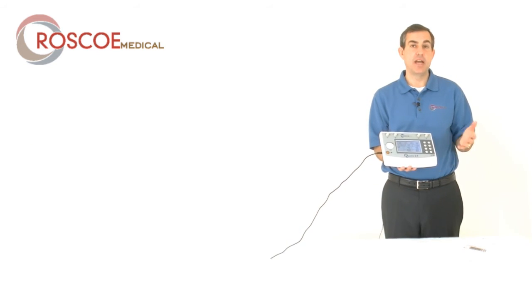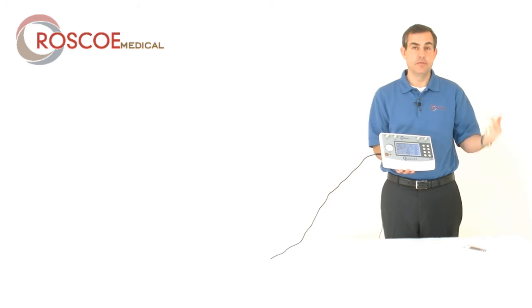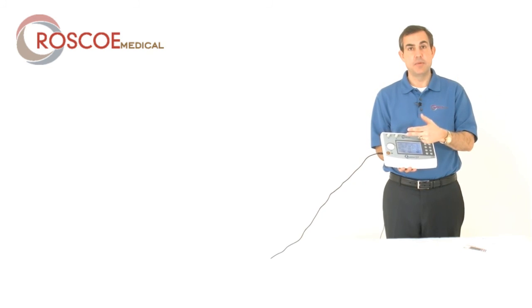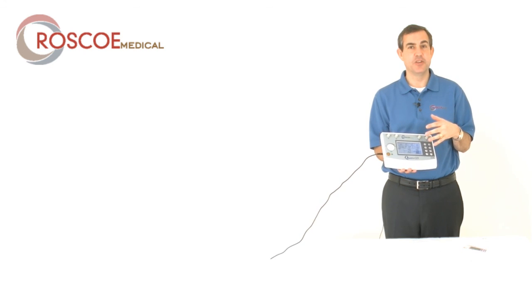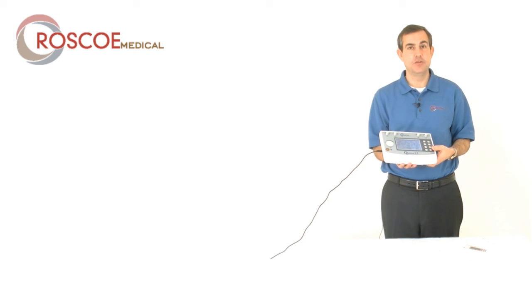Quattro 2.5. It's available now with these great updates of protocols, the stim on-off feature, and the two timers. There's other stuff baked in here too, which you guys are really gonna enjoy. Those are the main features. Thanks so much for watching the video. I hope you guys like the new device.